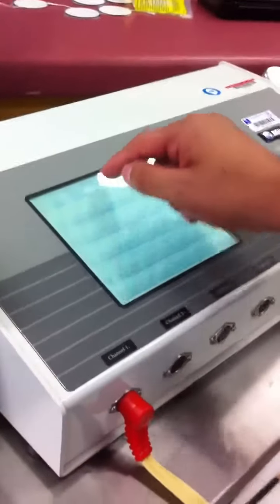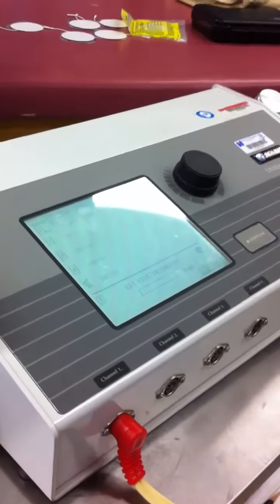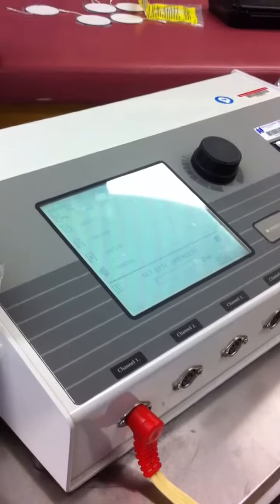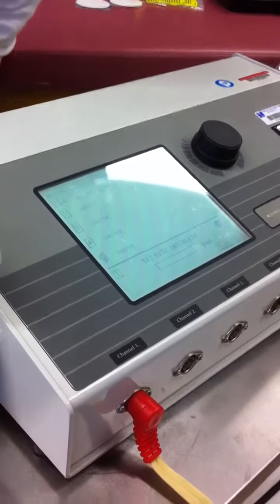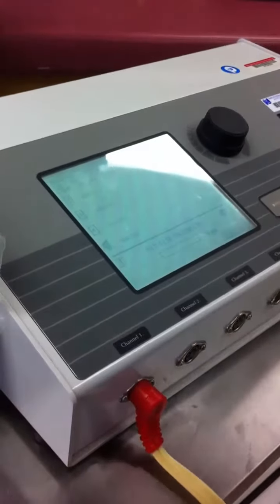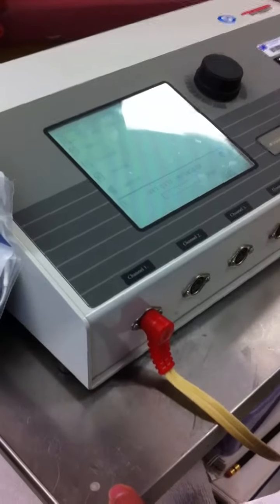Peter, channel 1, press quick 3 for me. All right, what's that? It's TENS, but low rate. Look, the very, very top. Oh, no, that's NMES. Right. How did you know?